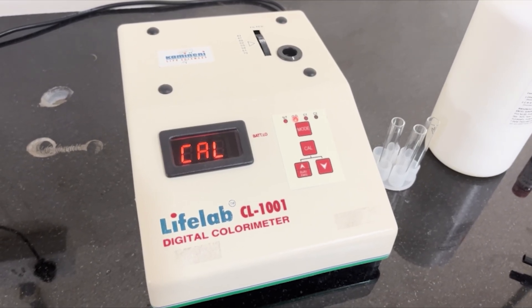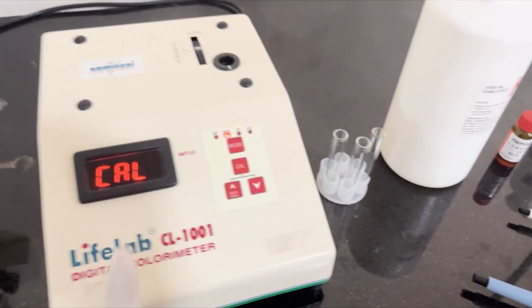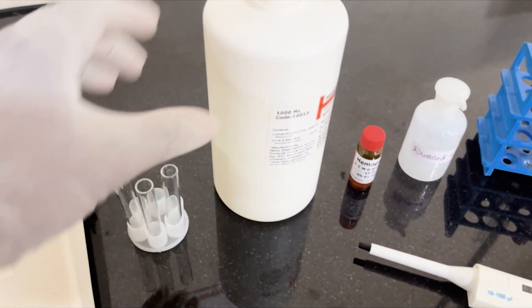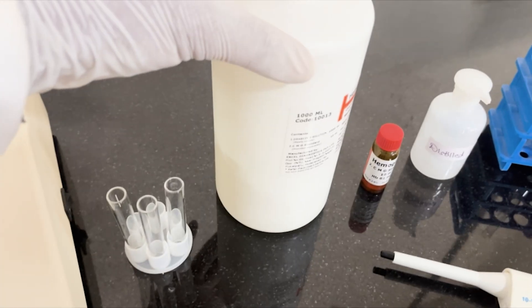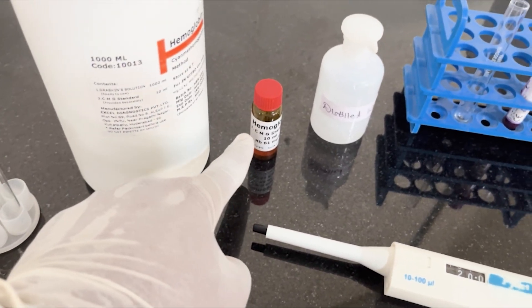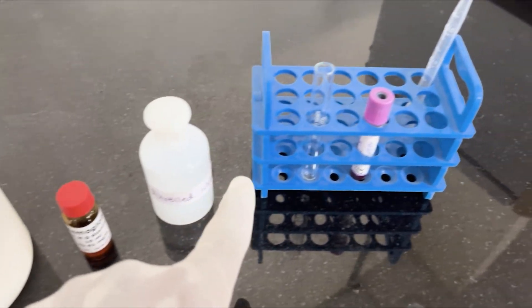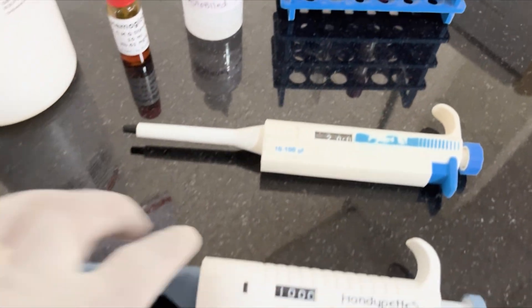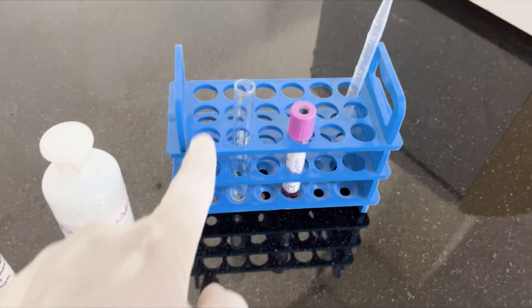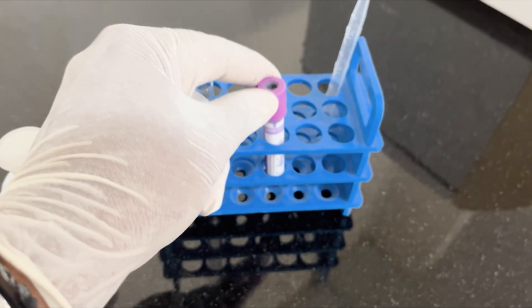We need a digital colorimeter, cuvettes, Drabkin's reagent, hemoglobin standard solution, distilled water, micropipettes, a test tube, and a blood sample.